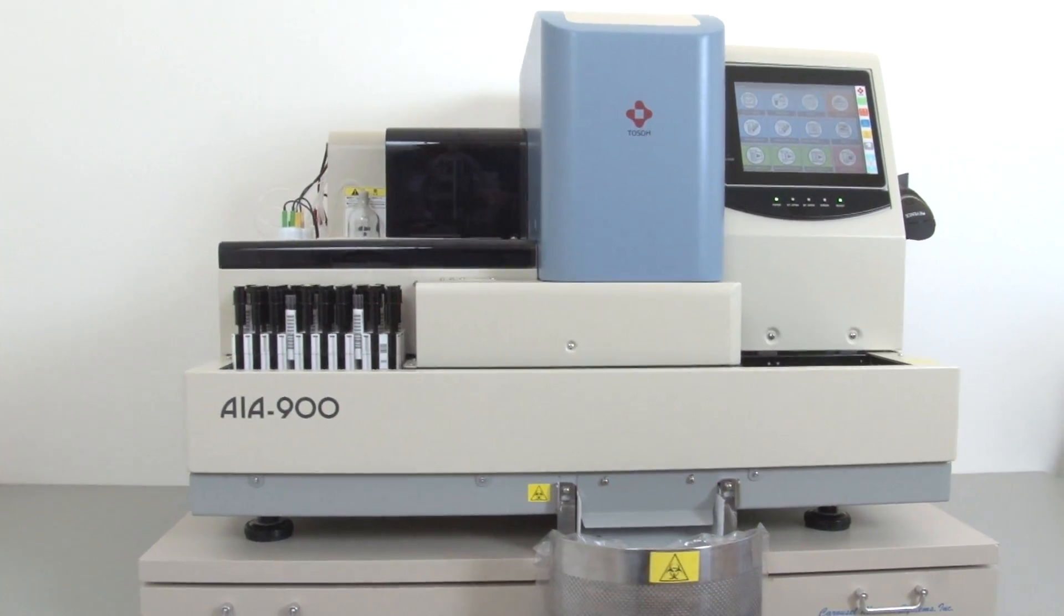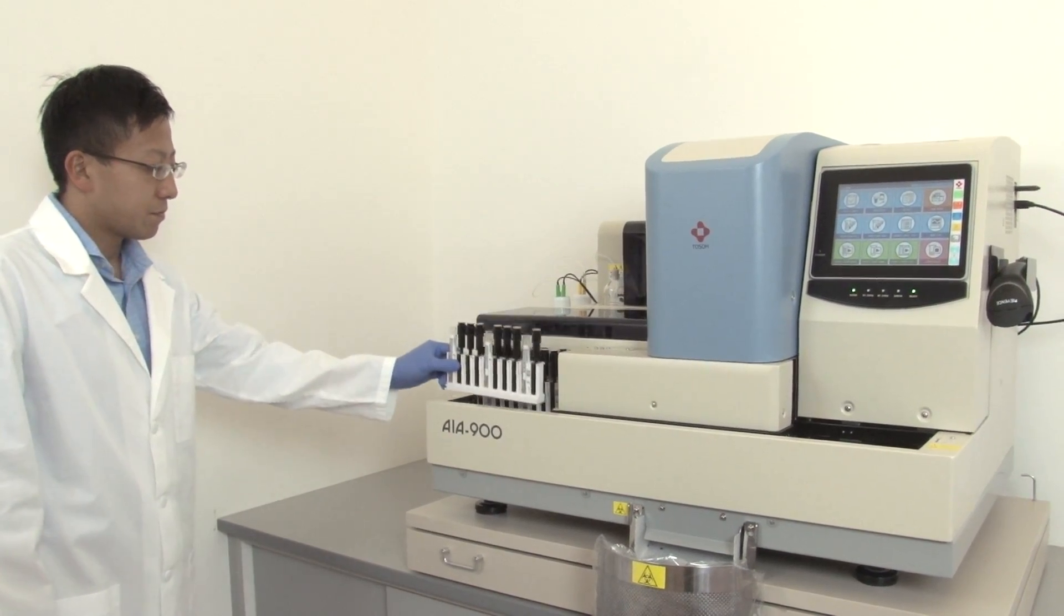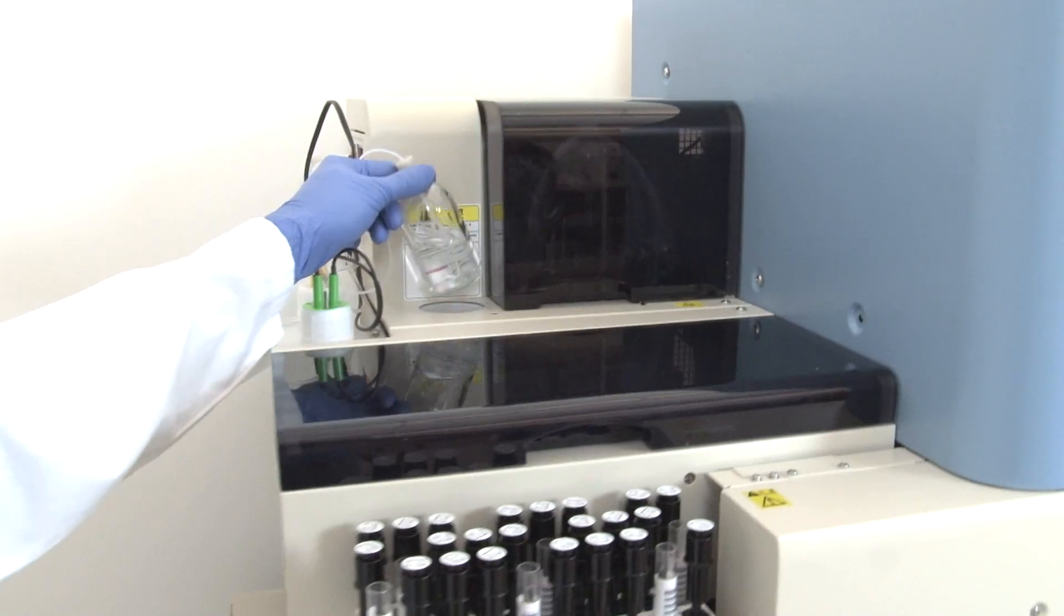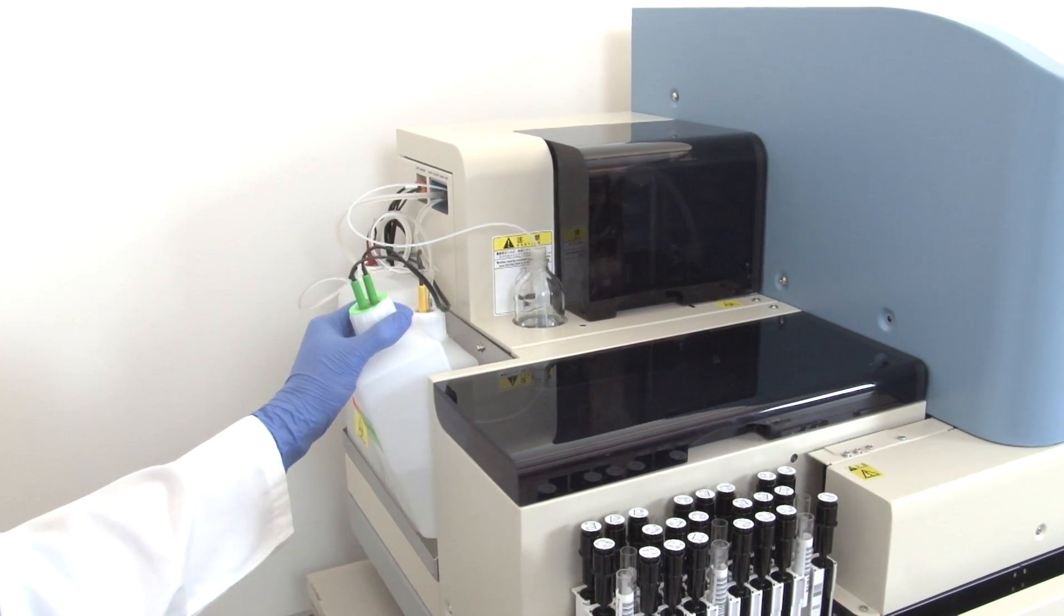The AIA 900 is now available in a benchtop model, providing the same features as the loader model in a compact analyzer.